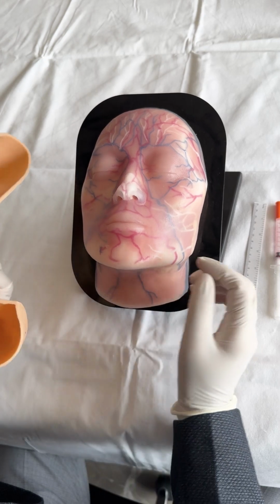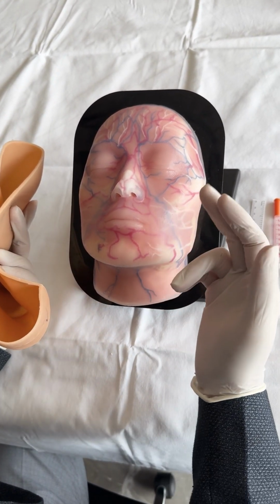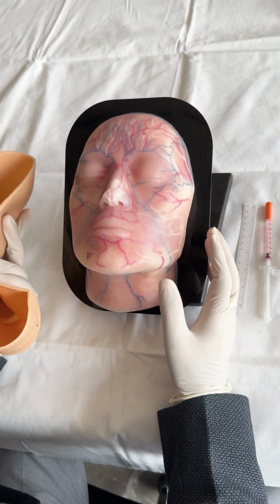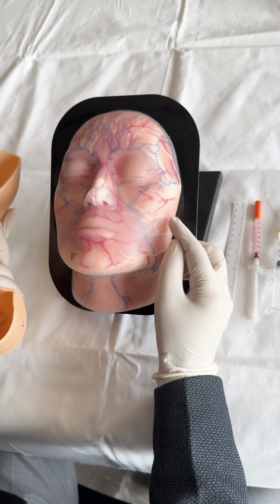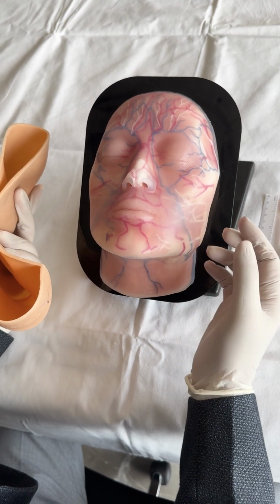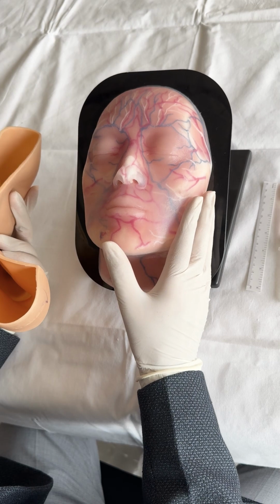These layers have vascular, venous and arterial supply, which can very easily be seen in the model. In addition to that, we have the nerve supply, clearly demarcated by the white lines. It also has the cartilage and parotid glands depicted in the model.